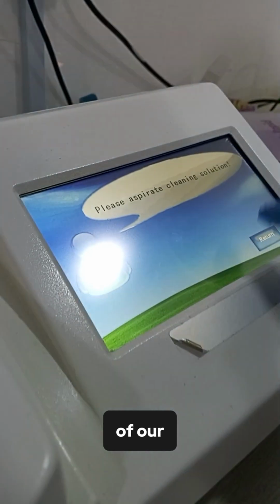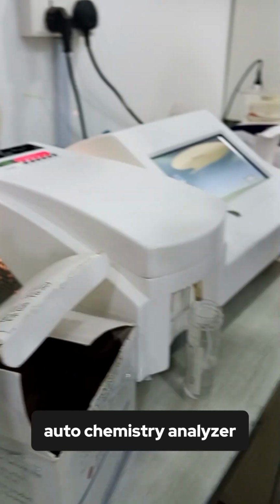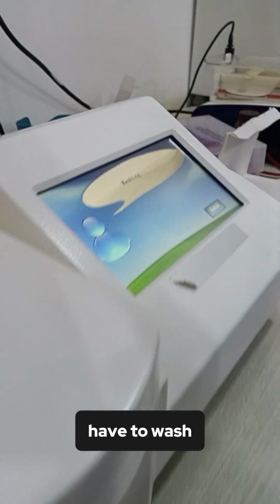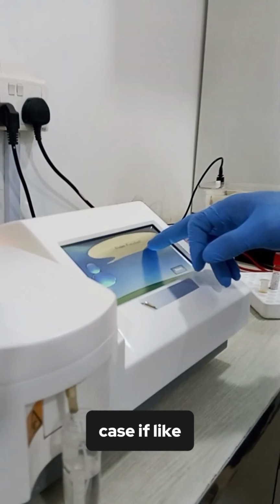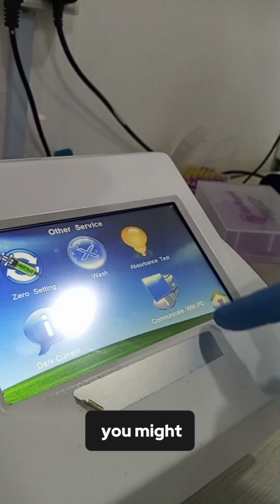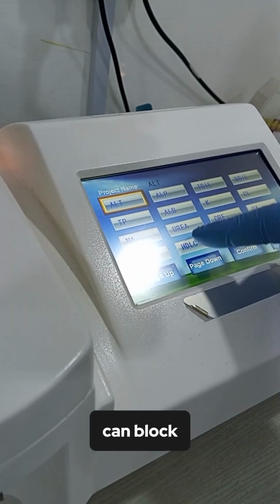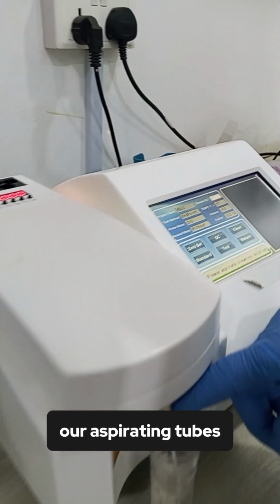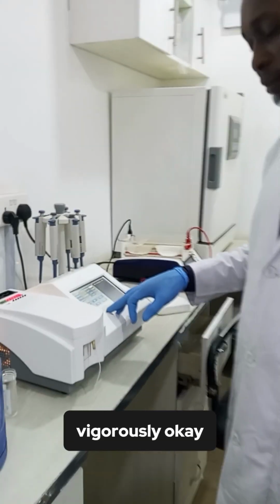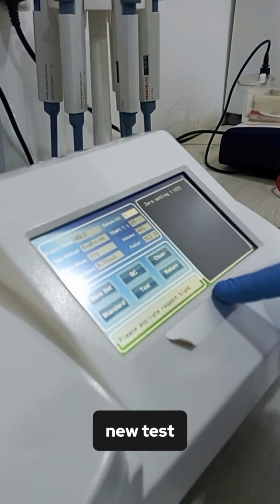You can see the interface of our semi-auto chemistry analyzer. First of all, before you run this test, you have to wash the machine. You wash it in case the previous test you might have run maybe contains a color solution. This color solution can block certain of our aspirating tubes inside. You don't know, so you need to wash vigorously. You need to wash the machine to wash those things out before you run a new test.